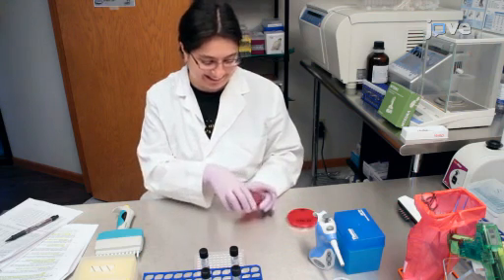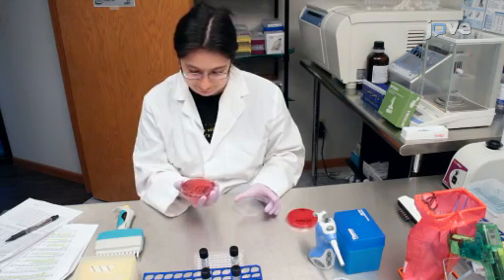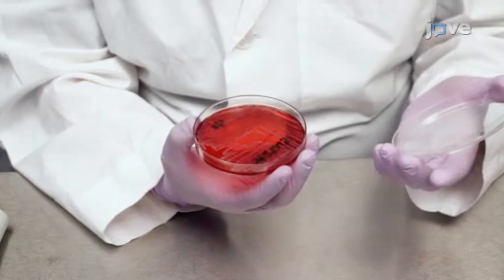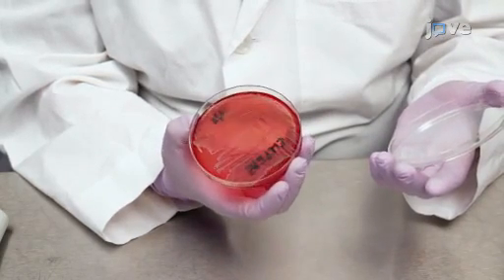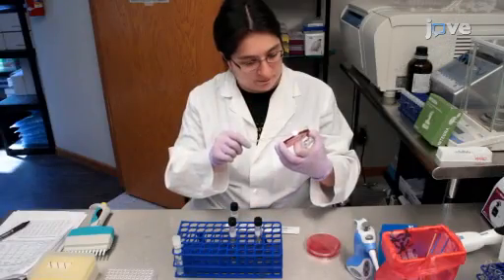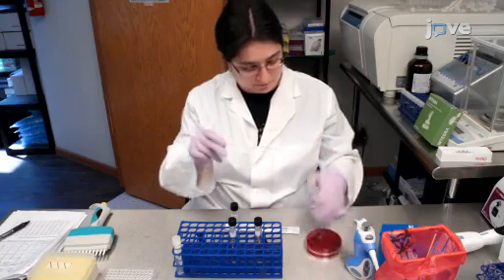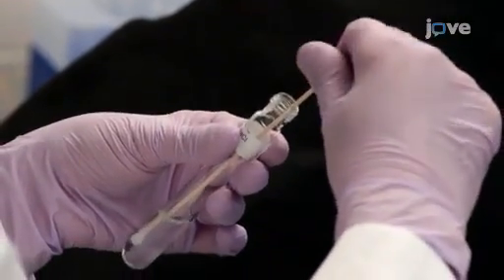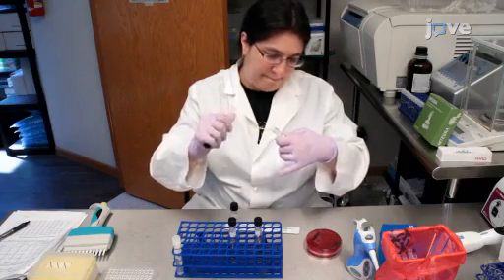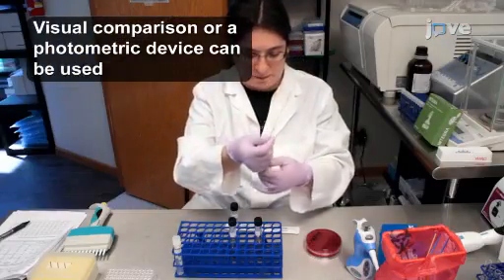To prepare the inoculum, select several well-isolated colonies from an 18 to 24-hour blood agar or other non-selective agar plate. Here, quality control S. aureus and E. faecalis strains are used. Touch the top of each colony with a sterile swab and transfer some of it to a tube containing 1 to 5 milliliters of CAM-HB or saline. Keep transferring until the turbidity matches a 0.5 McFarland standard.